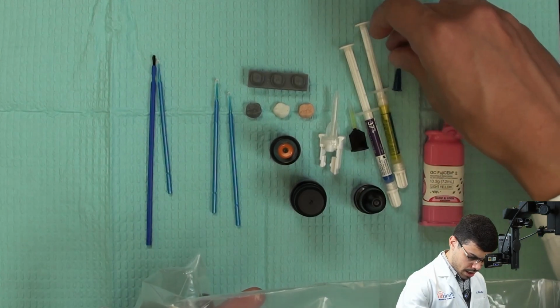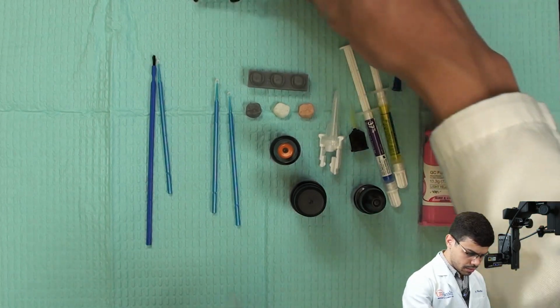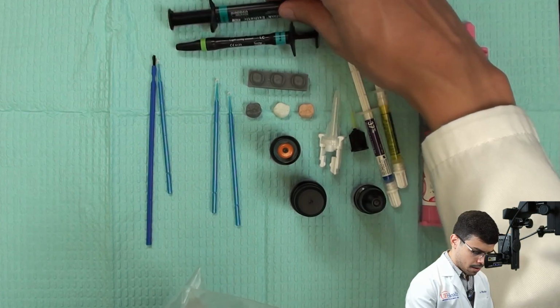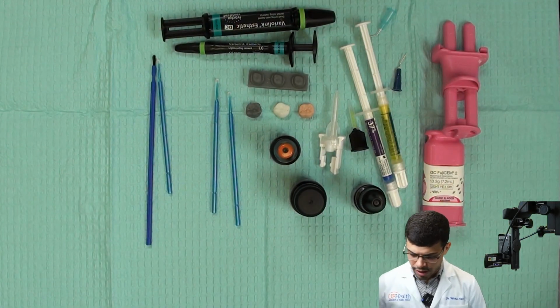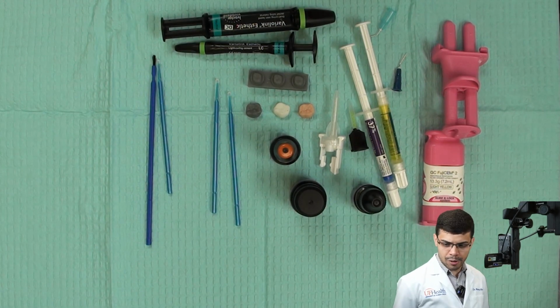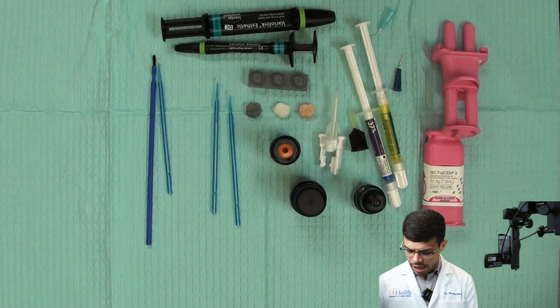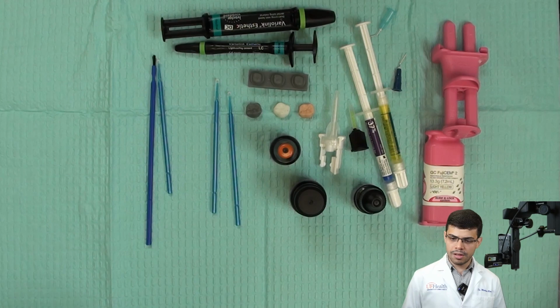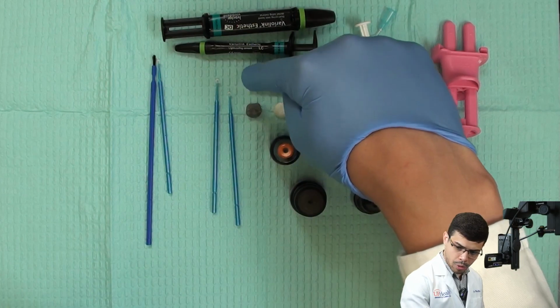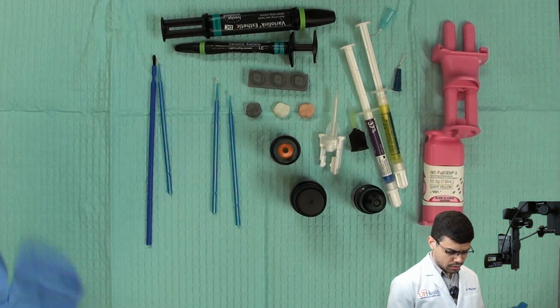These are the tips for the acids. You also receive a dual cure cement, okay? And a light cure resin cement. You're going to notice that based on this exercise, we're going to have some Easter eggs for you. Some of those materials are not indicated for use in the condition that we are going to use today. But I want you to think about it and already start writing on your decision tree which cements you think you're going to use with each one of those materials, okay? So think about full metal crown, zirconia, and Emax.